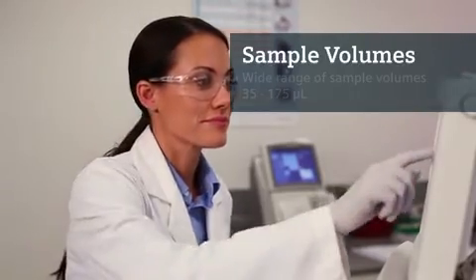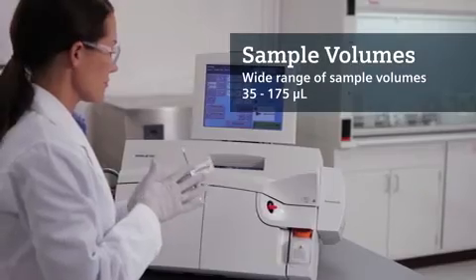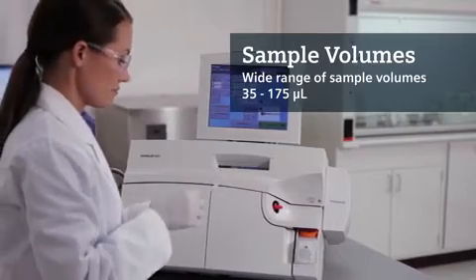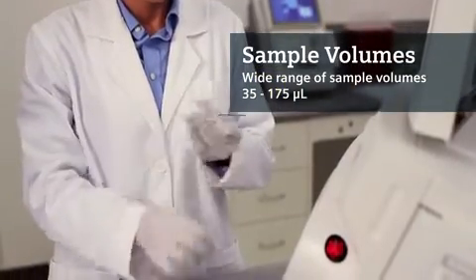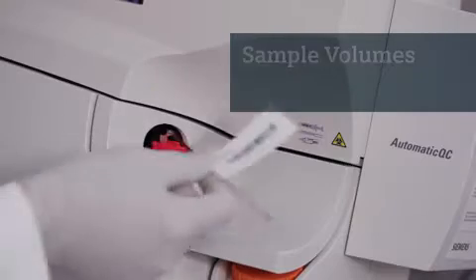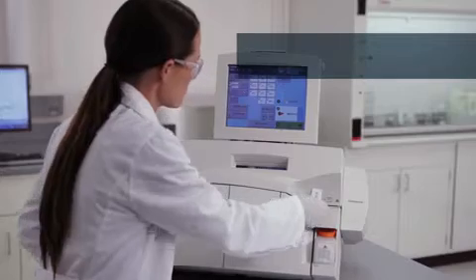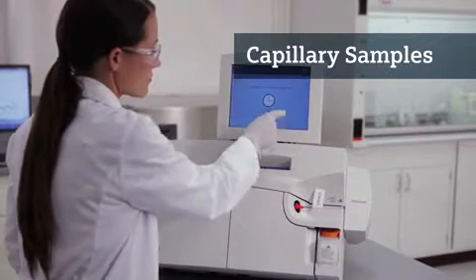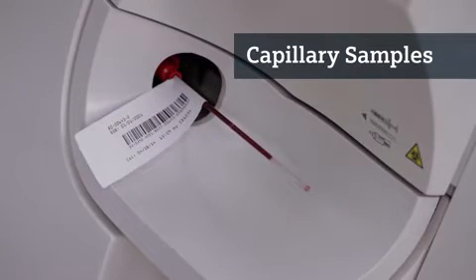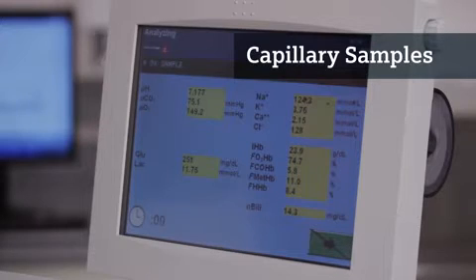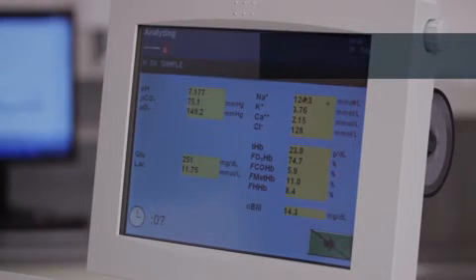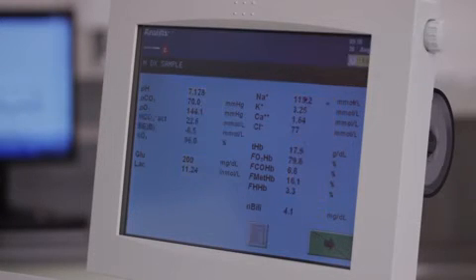Typical sample size is 175 microliters for all parameters, but depending on the analytes and sample type selected, results are available on as little as 35 microliters of whole blood. The RapidLab 1200 system analyzes even the smallest of patient samples using capillary tubes. The automatic identification of a small blood sample instantly shifts the system into micro-sample mode, ideal for the NICU setting where volume is critical.